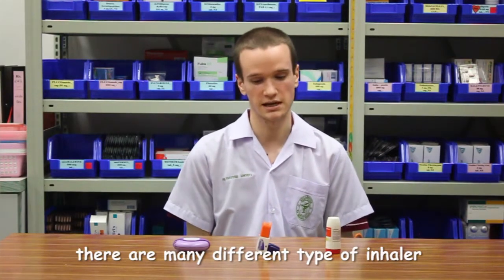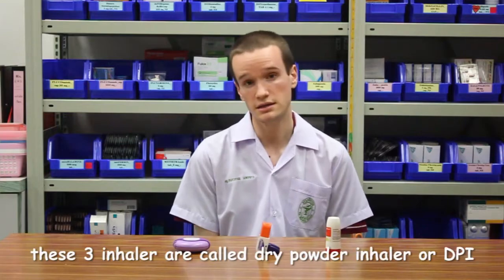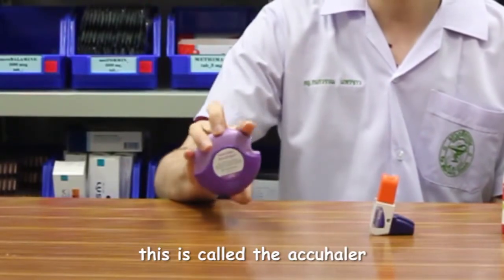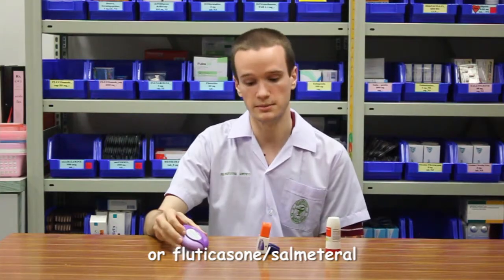There are many different types of inhalers that can be used for the treatment of asthma or COPD. These three inhalers are called dry powder inhalers, or DPIs. This is called the AccuHaler. It contains medications such as Advair or fluticasone salmeterol.